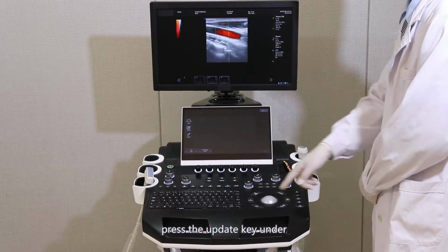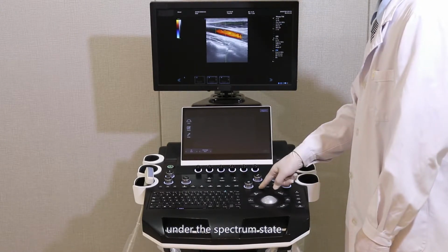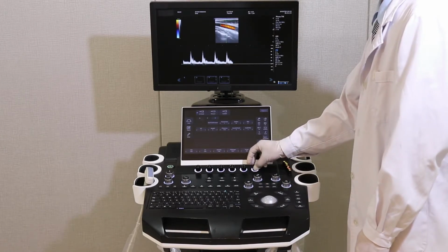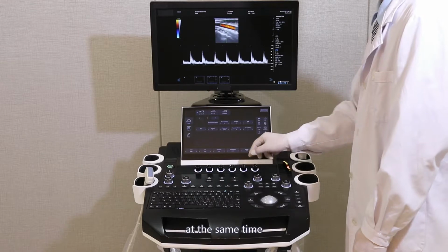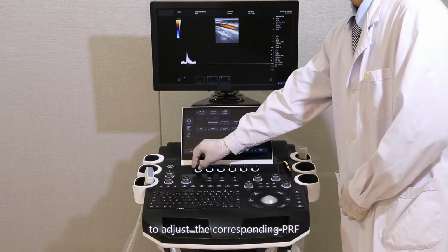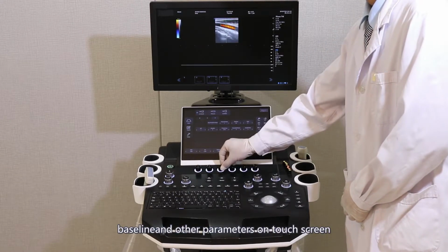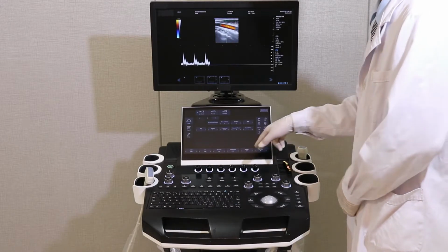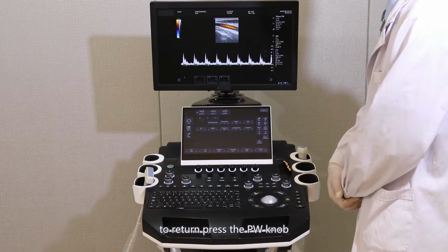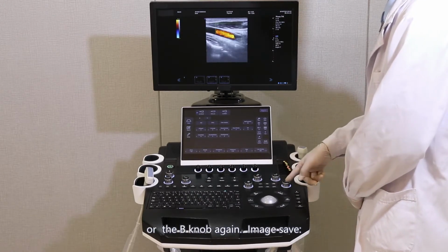Press the update key under the spectral state. The spectrogram appears. At the same time, adjust the corresponding PRF, baseline, and other parameters on the touch screen to get a better spectrogram display. To return, press the PW knob or the B knob again.